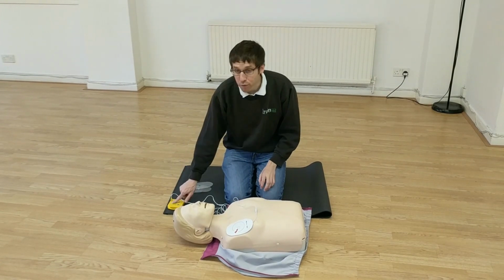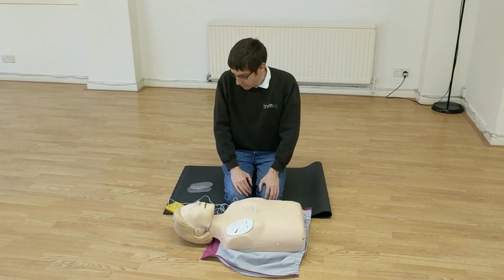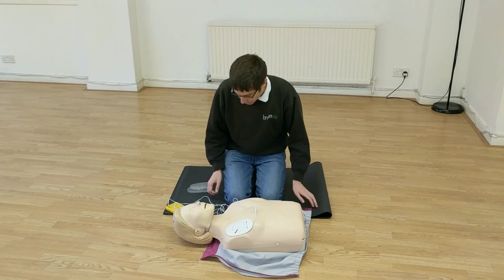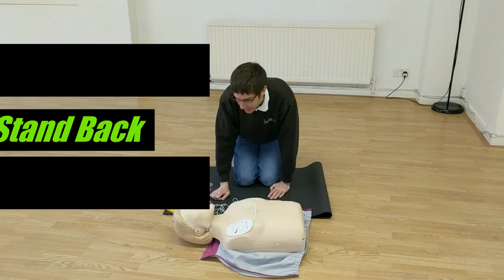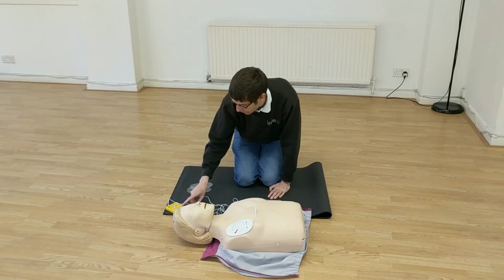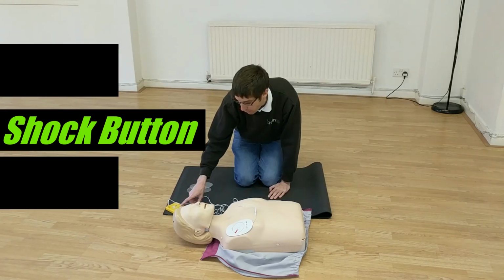The machine always prompts to tell you what's going on. Touching could interfere with the signal. Okay, it's telling me you can shock the casualty. We get you to stand back. You're ready to shock. So everyone stand clear.